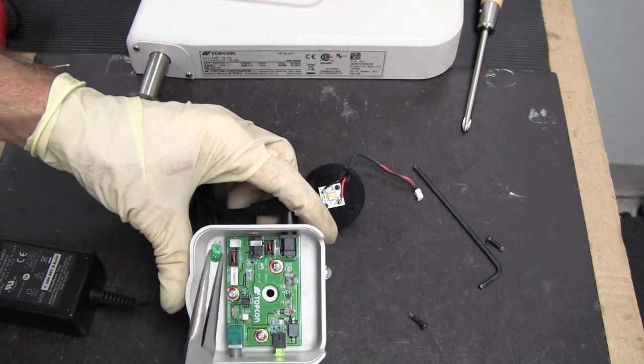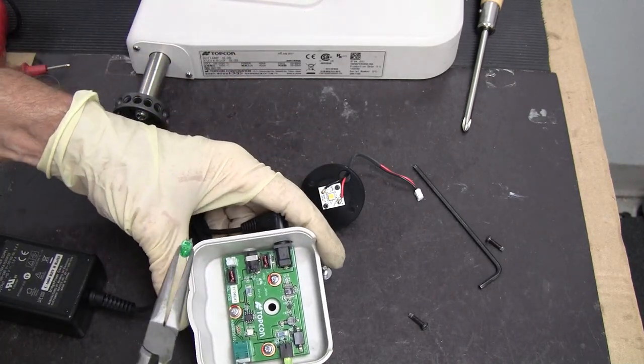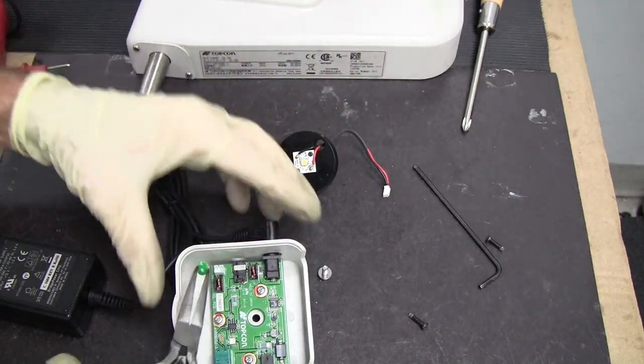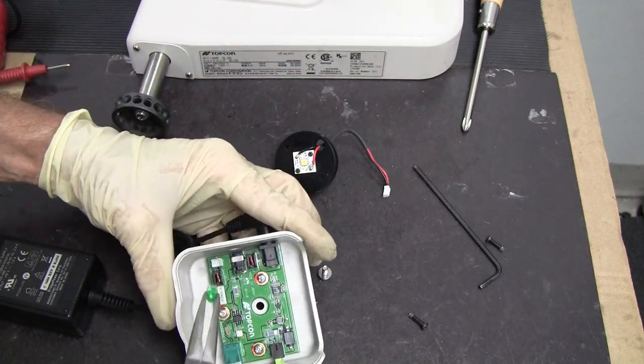This is an LED. I'm just going to touch the two terminals where the wire would be plugging into it, and we'll see if it comes on.